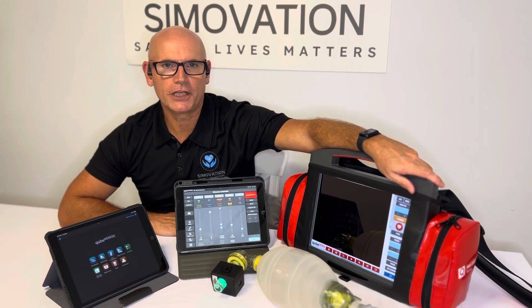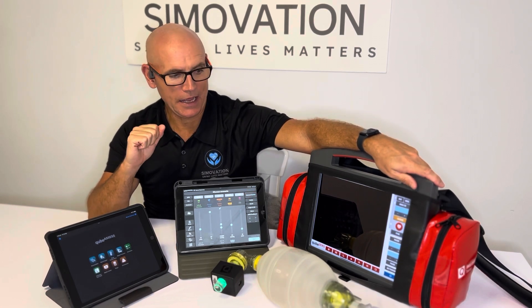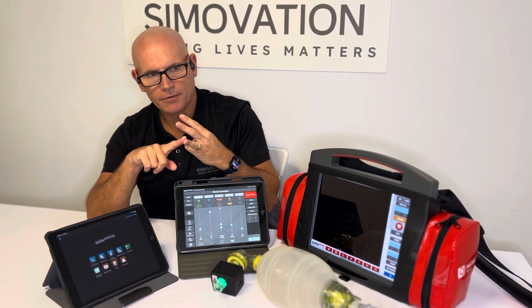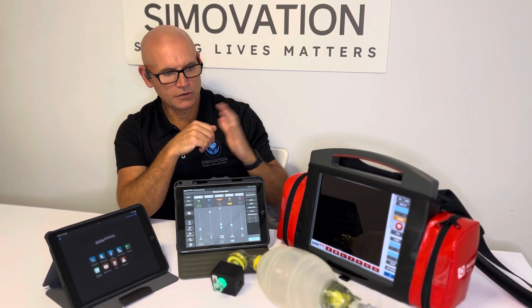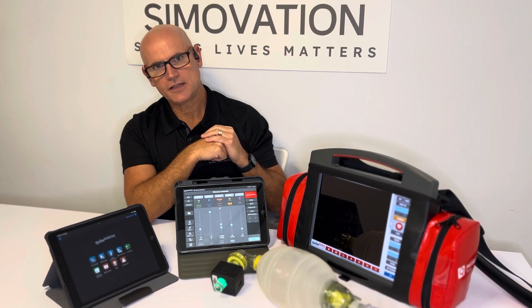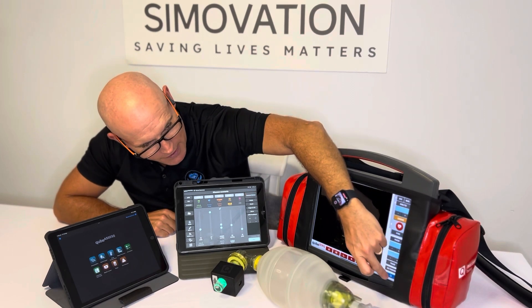Welcome back to this short video showing you the generic Cube Series defibrillator monitor interface, which is beautiful, seamless, simple, and highly intuitive to interact with. It gives you manual mode, AED mode, and pacing. It provides a series of different screen settings for your typical in-hospital patient monitor to ICU monitor look and feel, different number sizes, and you can do a full 12-lead ECG.